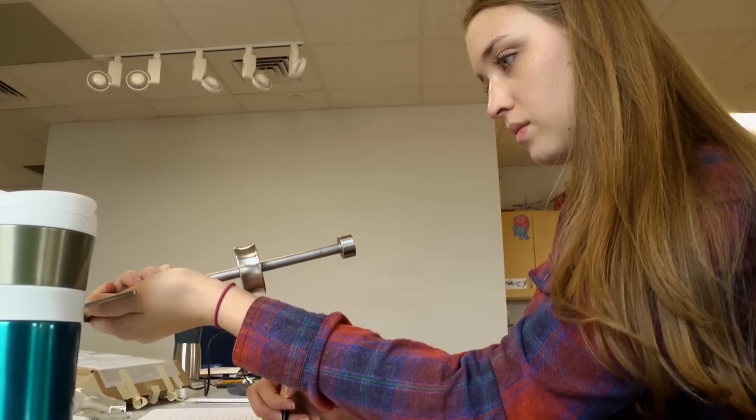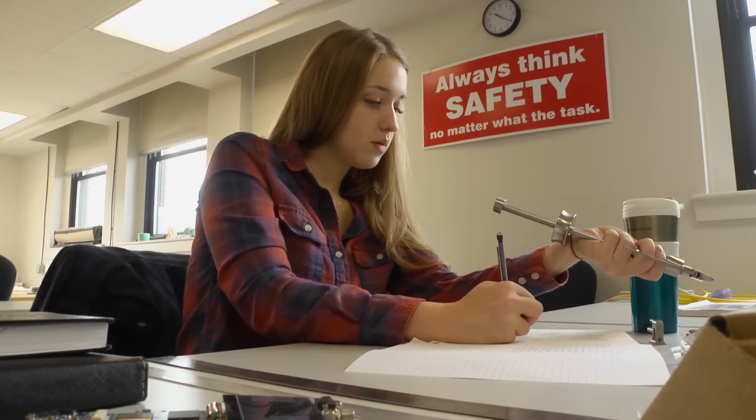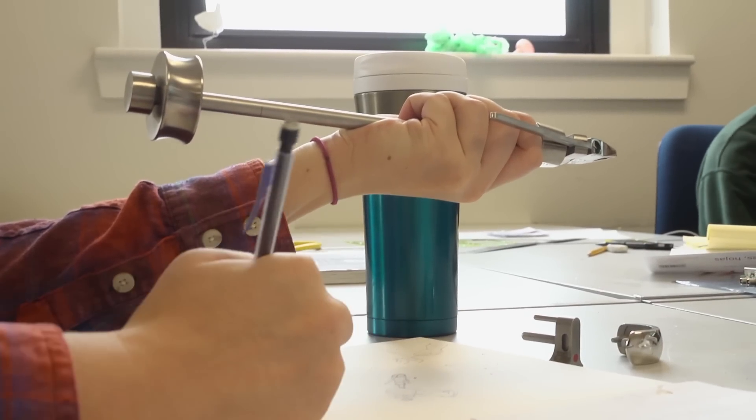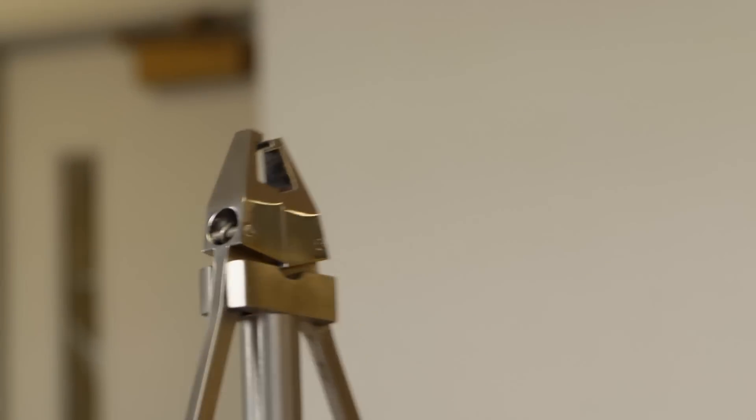It was astounding to know that I had this opportunity and maybe I could do something with it. Elizabeth Snedeker, an industrial design major at Pennsylvania College of Technology, spent four months redesigning a common yet troublesome surgical instrument, an extractor for partial knee replacements.